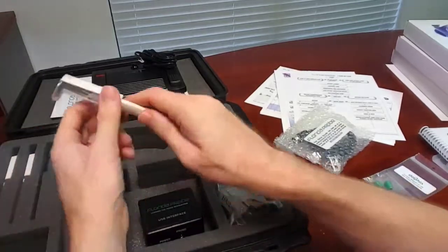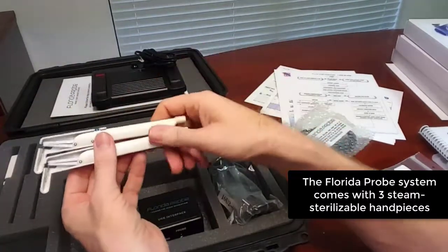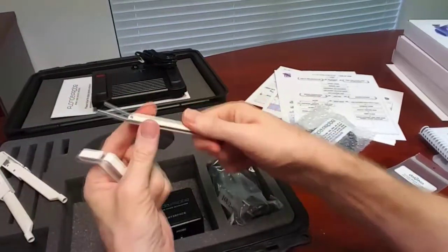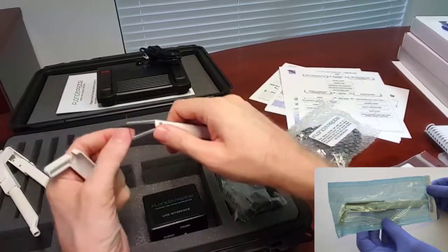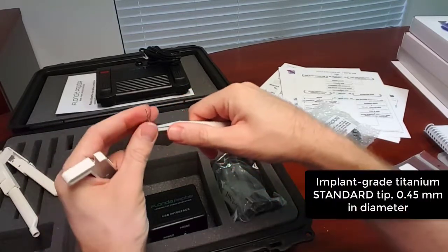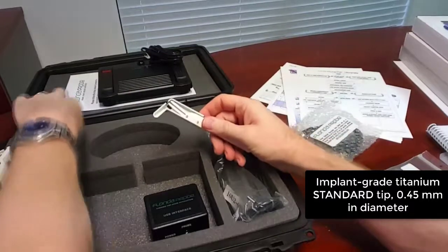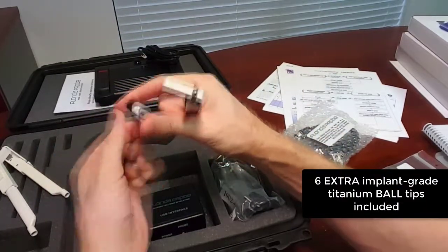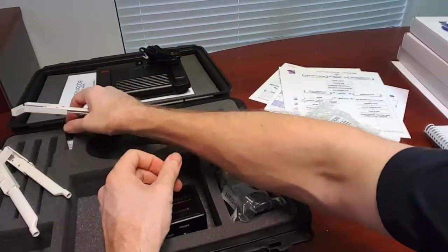The standard Florida Probe system comes with three steam sterilizable hand pieces, steam sterilized between every single patient. Each hand piece has a tip protector so you can bag and use them. The tips are interchangeable — they're implant-grade titanium and come with or without a ball. These come standard with no ball, but inside the case there's a tube of six additional tips that have a ball on them, so you can test between regular hand pieces and ball tips to see which you prefer.